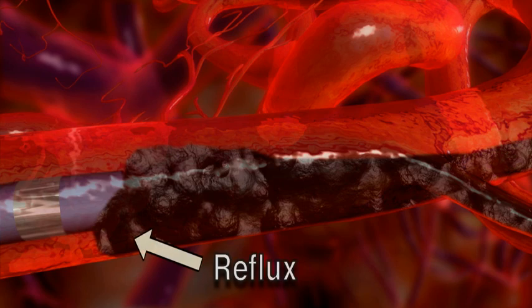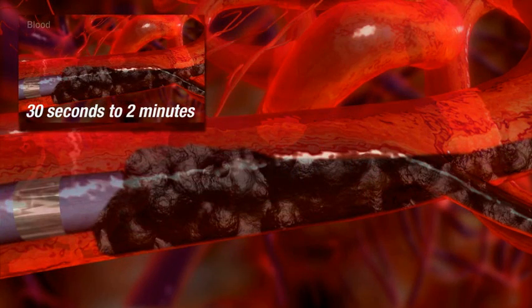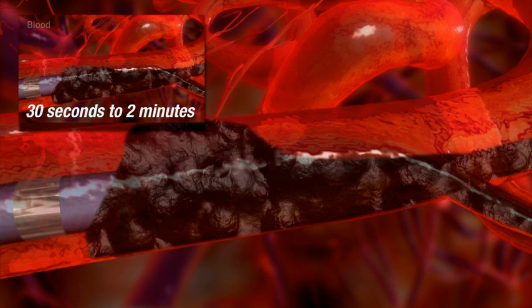The moment reflux is detected, stop the injection for a duration of 30 seconds to 2 minutes, allowing the Onyx to solidify at the site of reflux. Do not exceed 2 minutes.